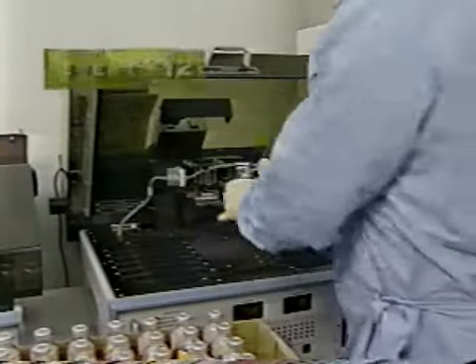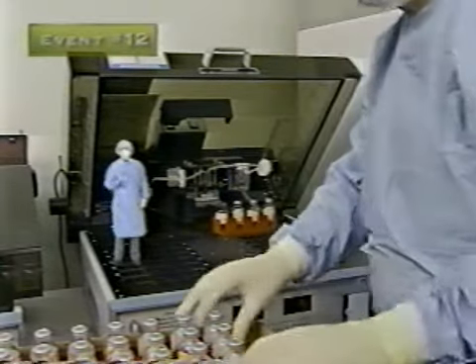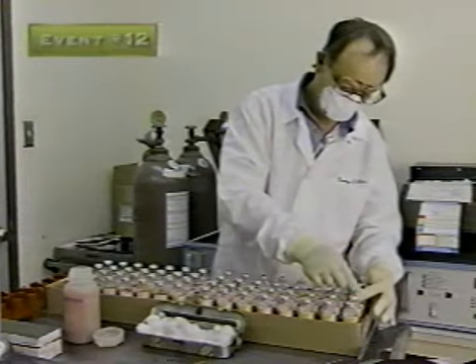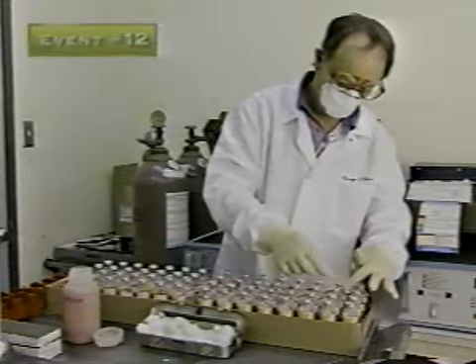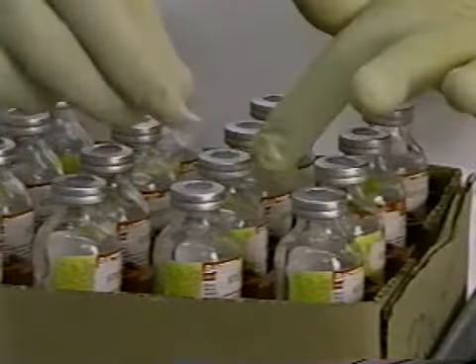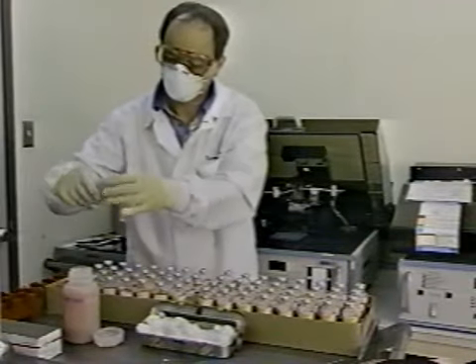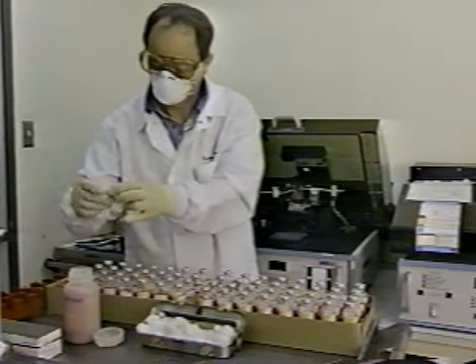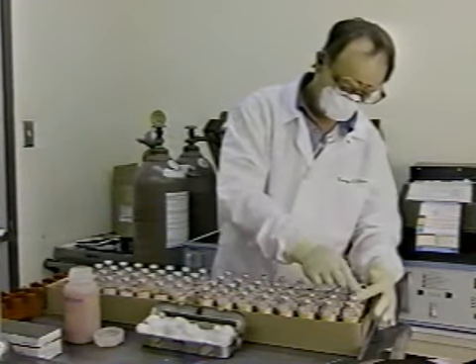What about this situation which happened when loading the Bactec 460? He forgot something. Before sampling, the culture vial's septum should be wiped with 70% alcohol. After sampling, the septum should be wiped again, first with a tuberculocidal disinfectant, followed by 70% alcohol. Potentially any organisms on either side of the septum can be transferred to another bottle via the sampling needle.